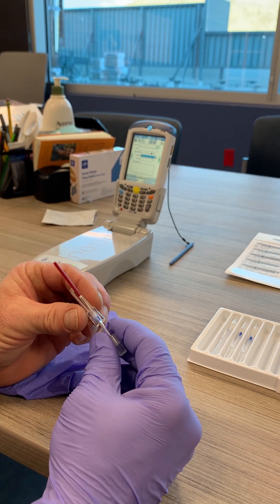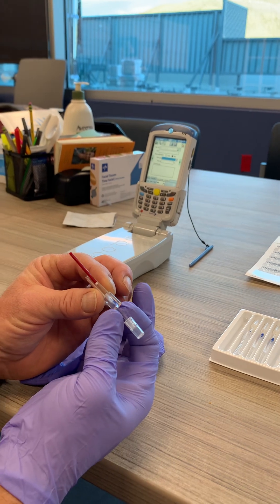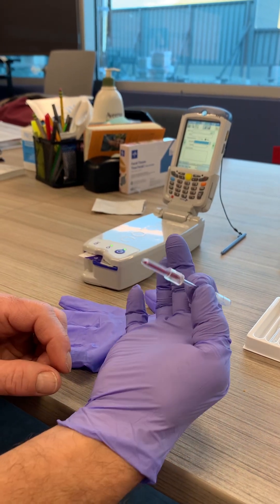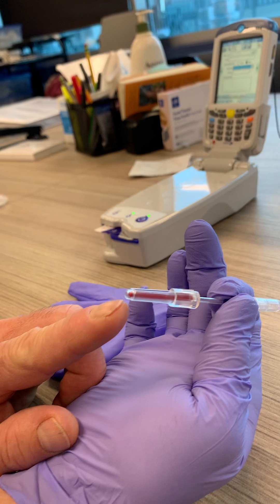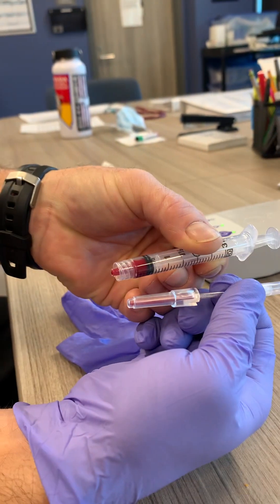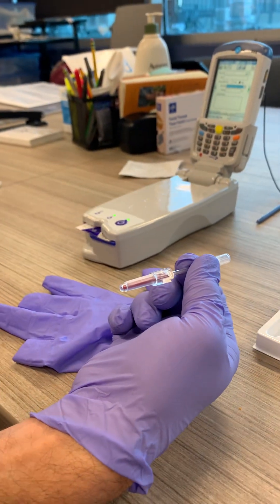Then what we're going to do is pull this back up. We're going to try to stay away from this plunger here. We'll pull that and then reseat it. What happens is this tip here replicates the tip of a syringe, and that's what allows us to seat it correctly into the EPOC unit.